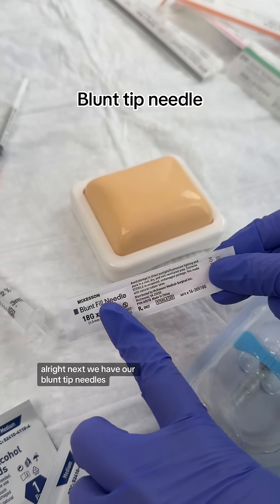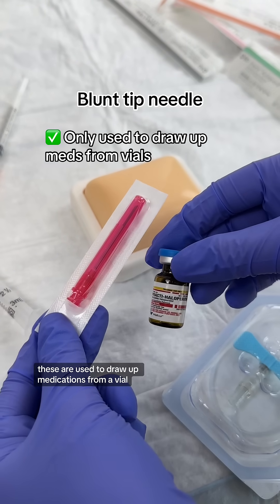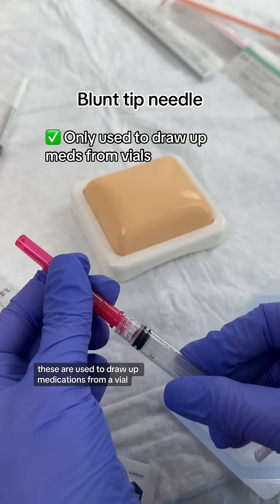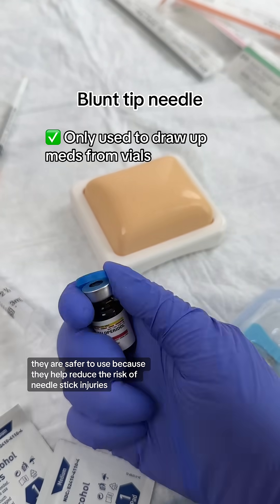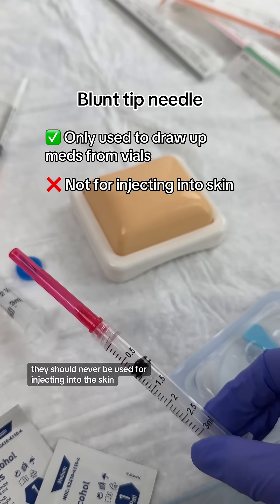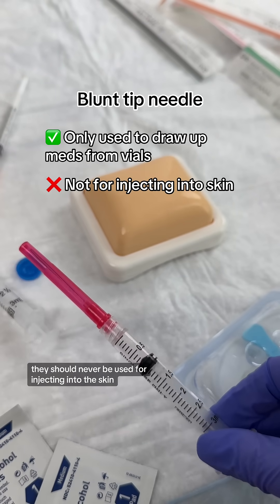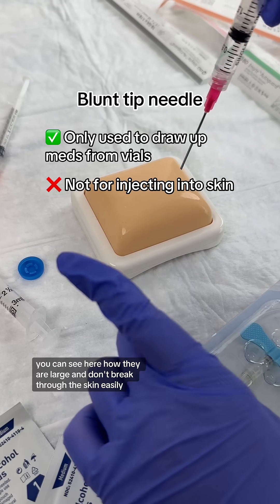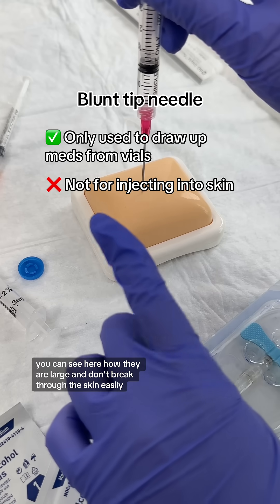Next we have our blunt tip needles. These are used to draw up medications from a vial. They are safer to use because they help reduce the risk of needle stick injuries. They should never be used for injecting into the skin. You can see here how they are large and don't break through the skin easily.